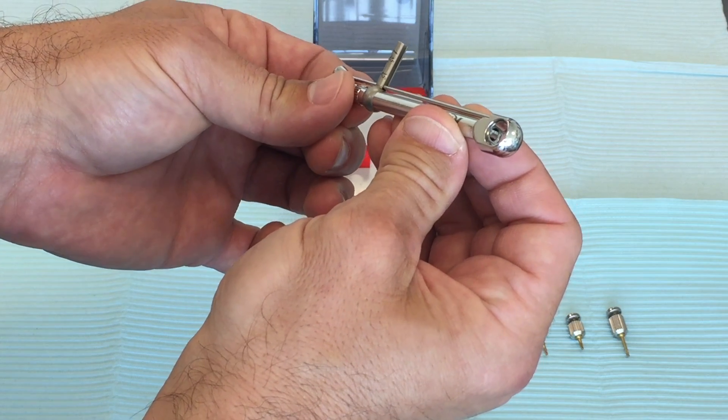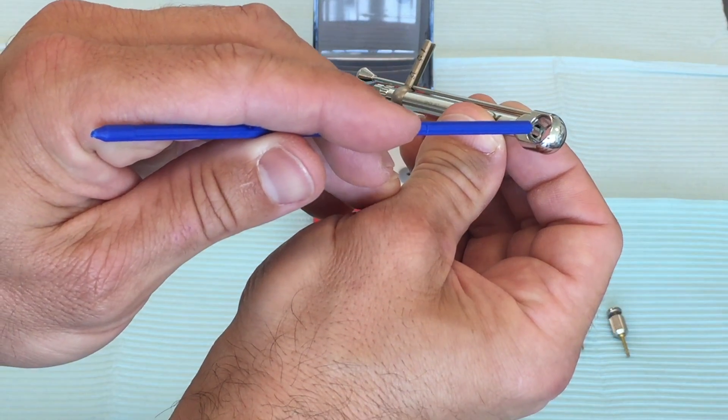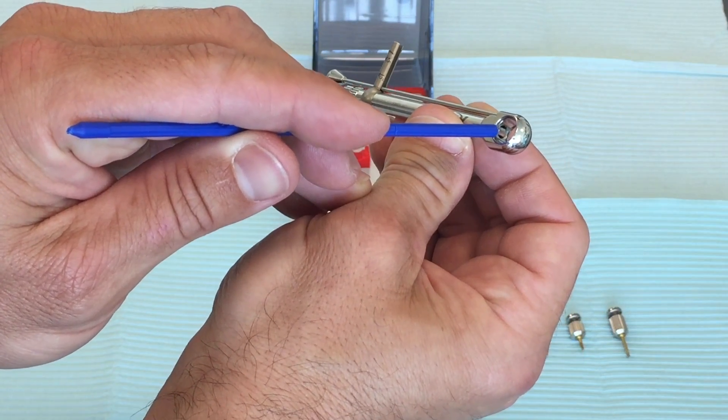You need to be able to see the little knob sticking out on the end of the housing here. If this isn't visible, then the wrench is just going to spin around the driver and you won't be able to tighten your prosthesis.